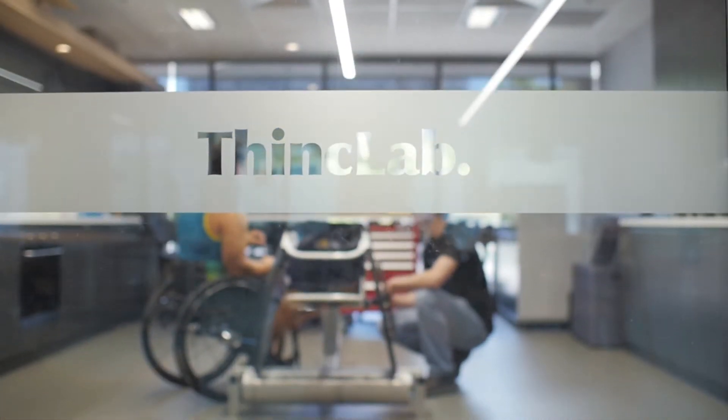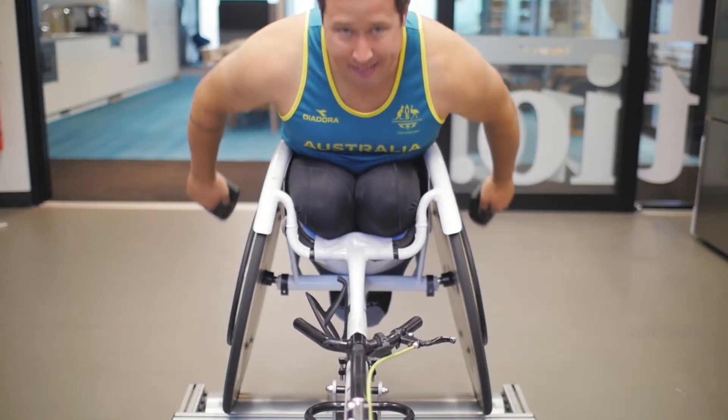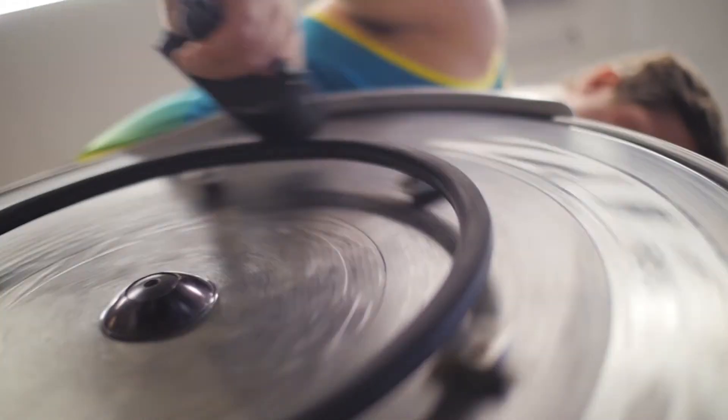The advantage of these gloves compared to my old ones — my other gloves were inconsistent in weight. I could push with the left and right hand at the same time, yet with the motion the recovery would be different because the gloves were a different weight, which threw out the human body's mechanics.